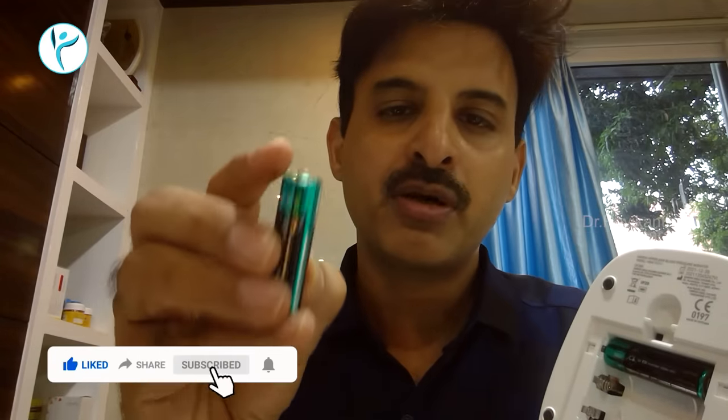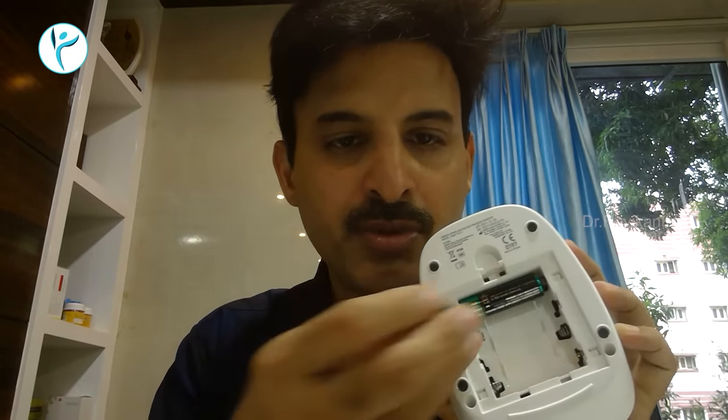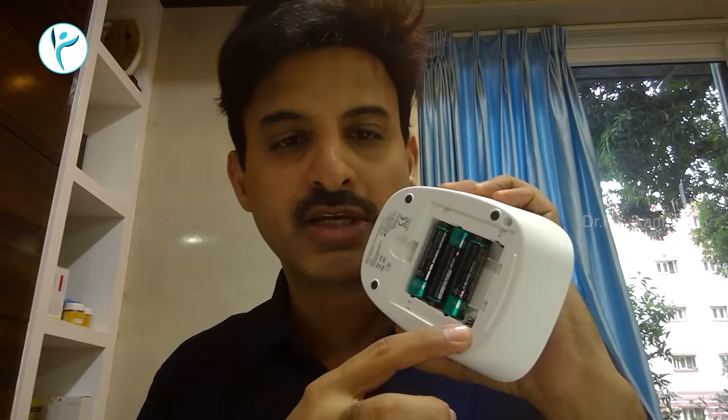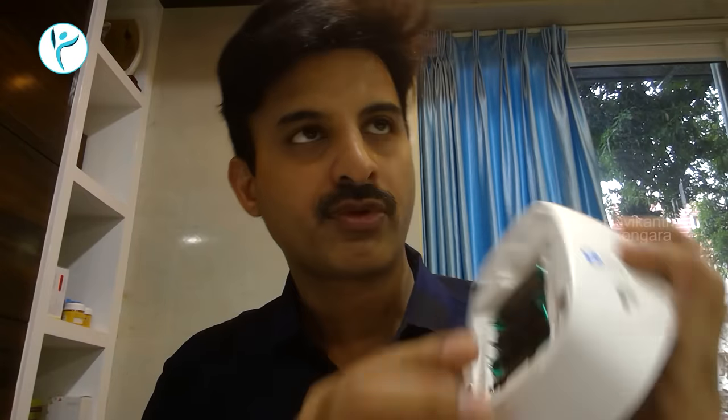The machine has parts including 4 batteries. You can place the batteries with the plus or minus orientation — the plus on one side and the minus on the other. When you have the spring, you can fit it the same way. Then try the first step.